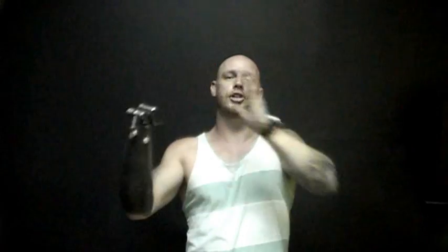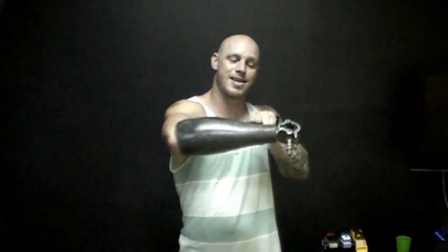This is for all your pushing exercises. For bench press, all I really do is leave it open, set the bar on top, and the weight holds it in. For dumbbells, you can clamp it over, lock it in, spin it down, and do curls. I also do curls with the over-the-elbow arm because it gives me a little more support throughout the length of my forearm — with this one all the weight presses down on the end of my arm.